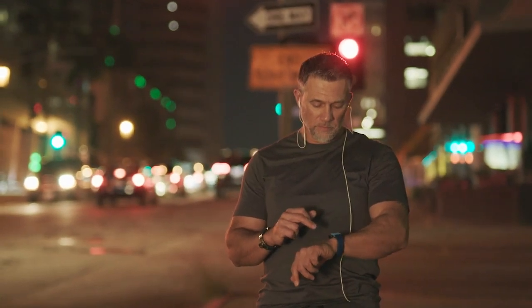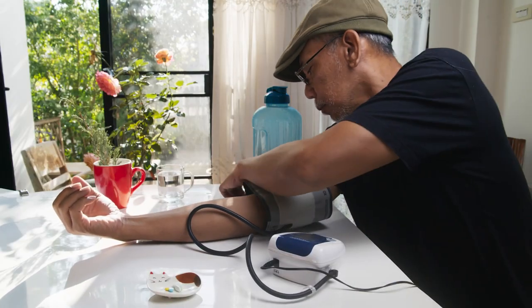The next thing to remember is proper positioning. Sit with your back straight, such as at a dining room chair. Keep your feet flat on the floor and have your arms sitting on a flat surface, such as a table next to you.